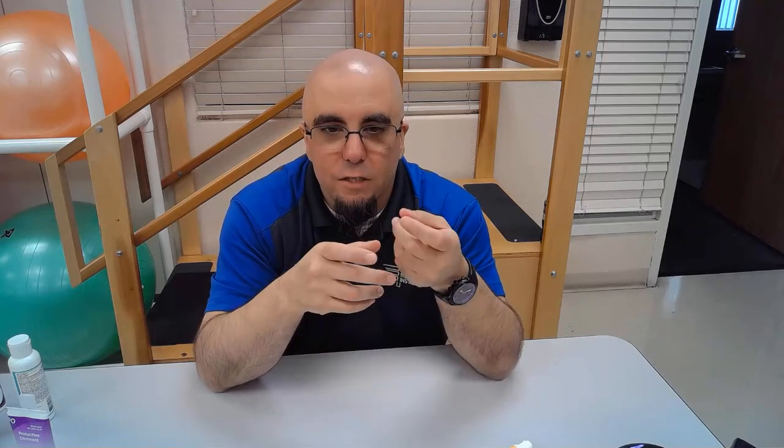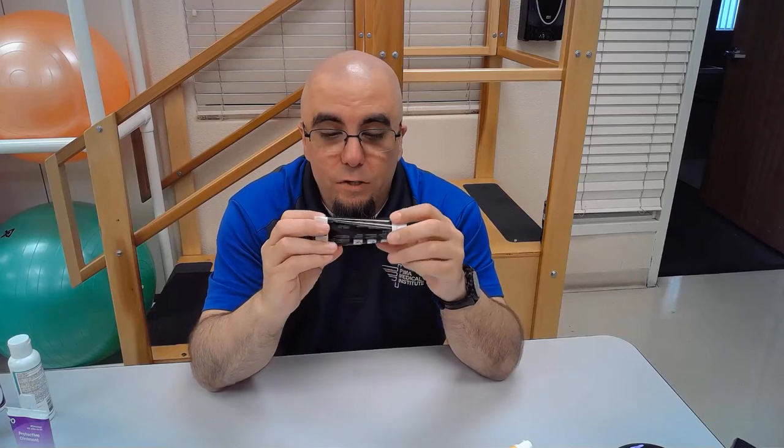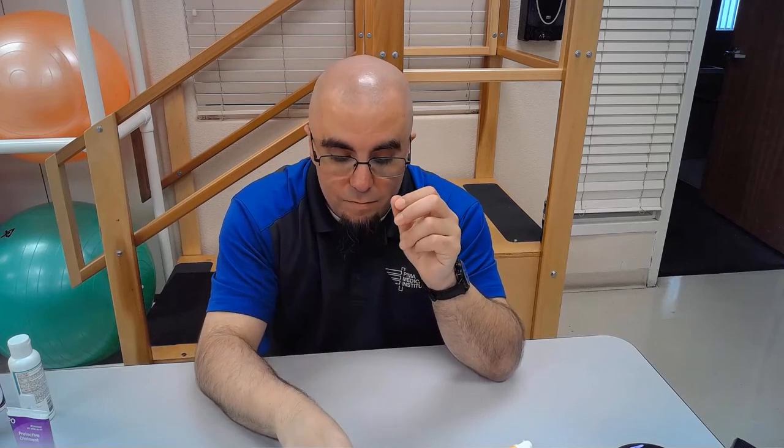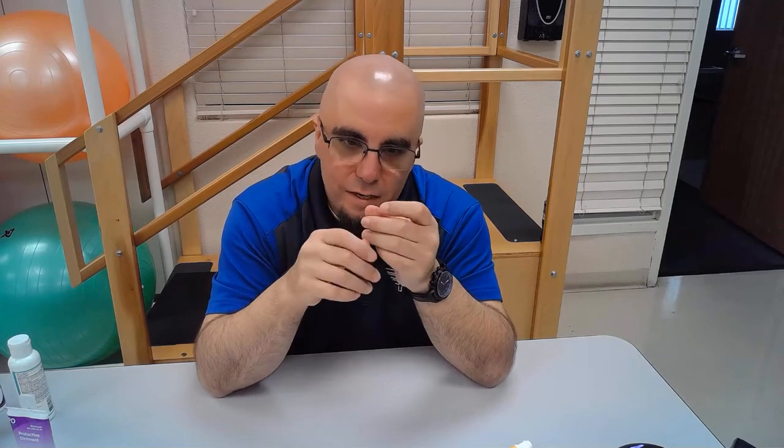Hydrogel doesn't require a prescription — it's just donating fluid to the area, though you still want to advise the PT if you use it. Once we start adding silver to any dressing, we do need PT clearance. Santyl is patient-specific — it will have a label with the patient's name, obtained from the chart at the nurse's station, placed on the container. It must go in the locked medicine cabinet of the wound care cart because it is a prescription.